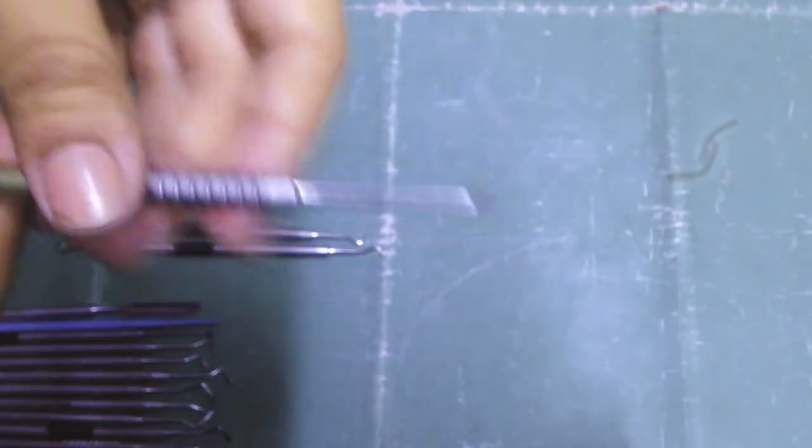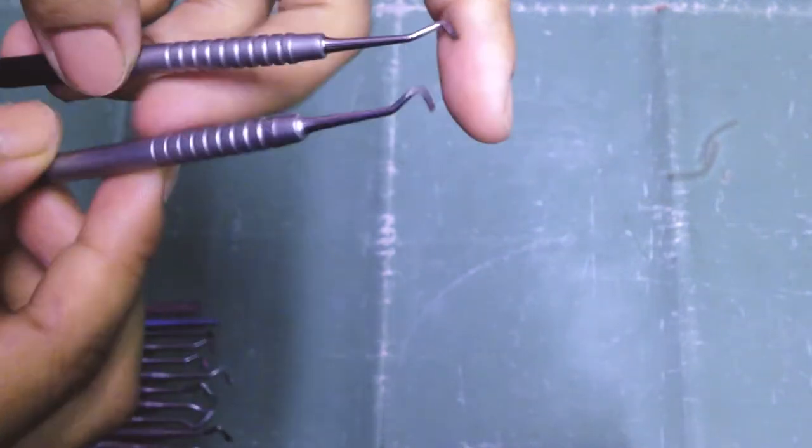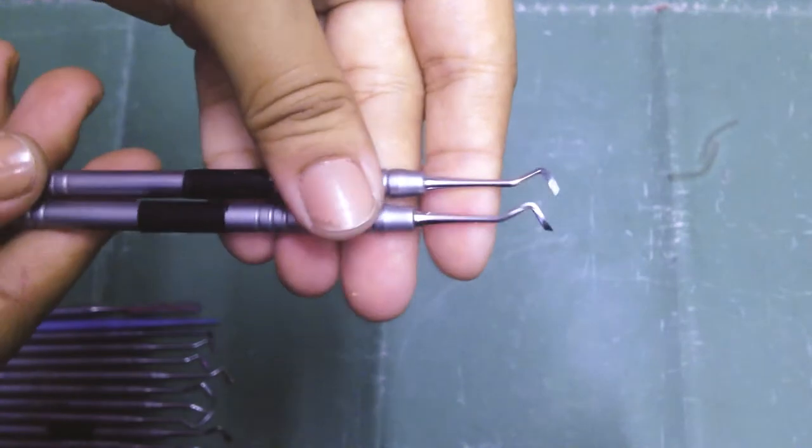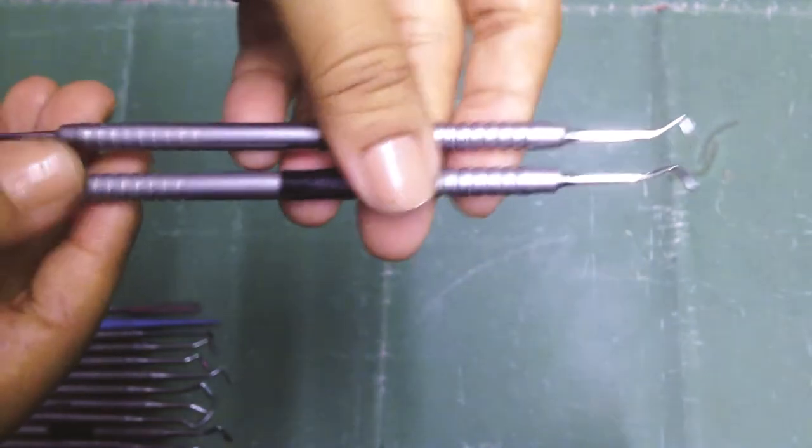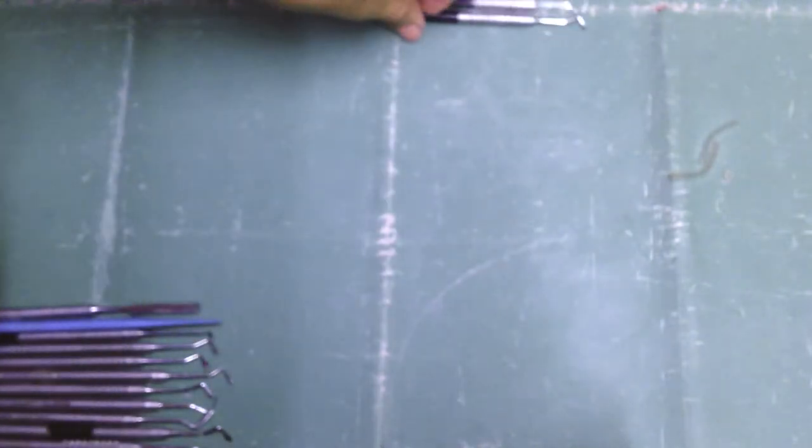Then we have GMT's. GMT's are curved. They are mesial, distal, left, and right. I'll make another video of how you can distinguish between them. So these were hand cutting instruments. Now let's move on to our restoration instruments.